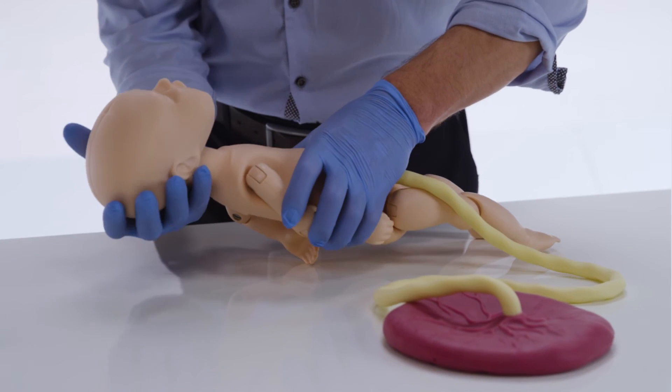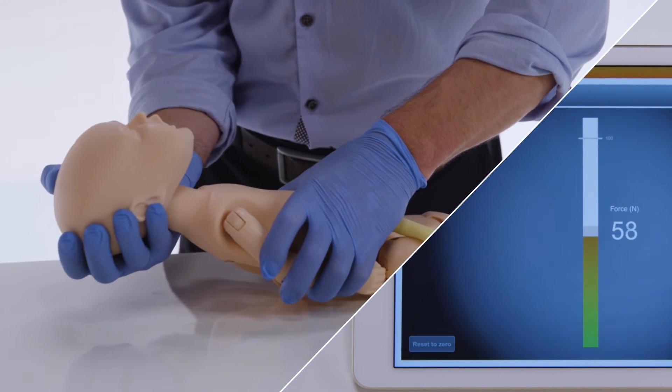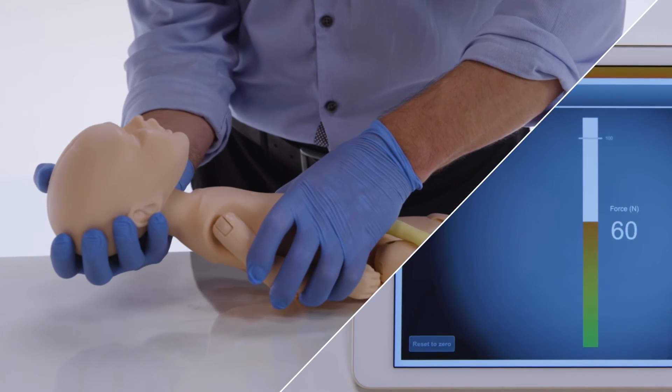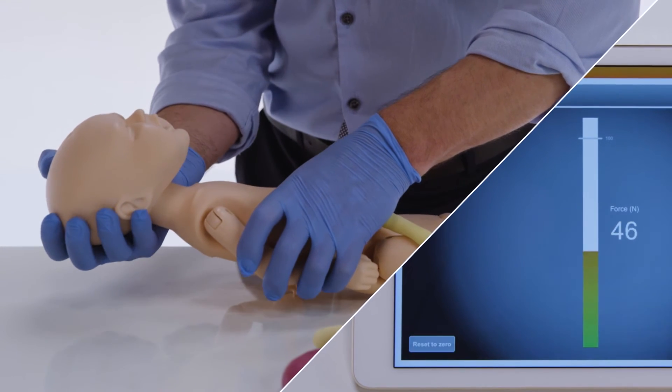The wireless technology incorporated into the baby works in conjunction with the software to record the amount of force applied when running a shoulder dystocia drill.